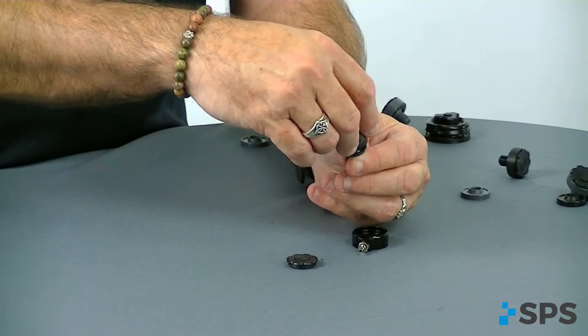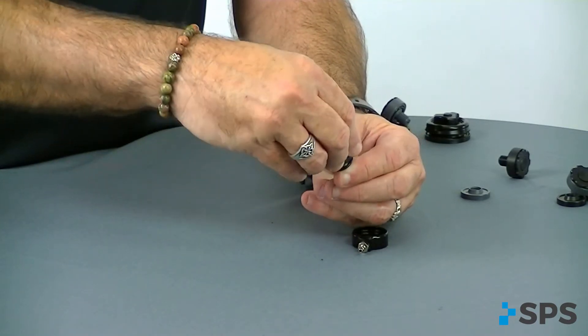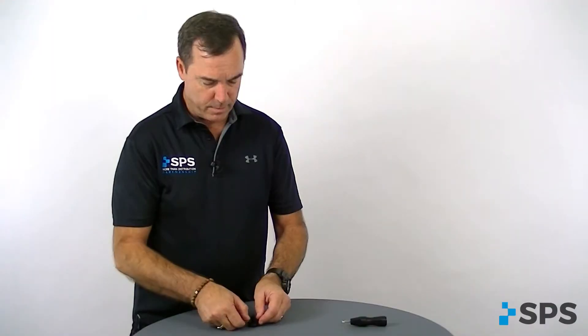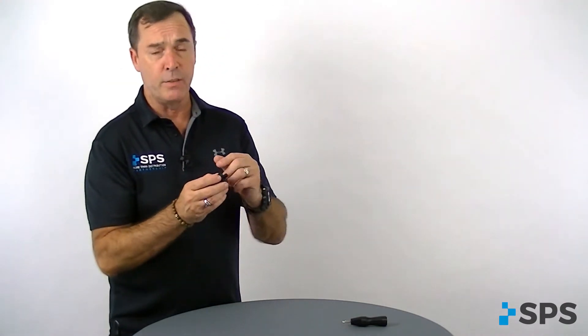Don't forget the spring — if your valve is not working after you reassemble, you probably left the spring out. Screw the cap on tight after you've cleaned it; it would snap back into your housing. They do suggest there is an O-ring when screwing it onto the socket. The suggestion is made to use a silicone adhesive to even off the curves of a laminate socket when using the hybrid valve or the direct screw-in ARIA valve with push-button release.